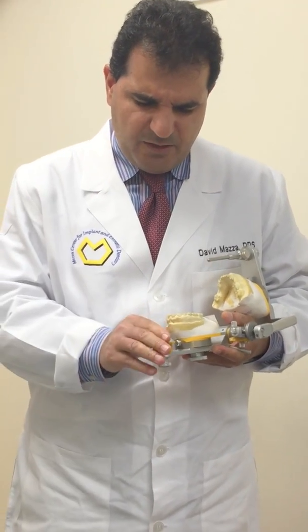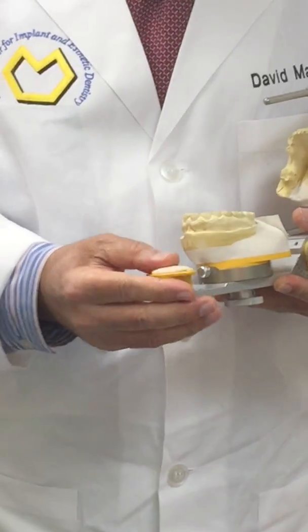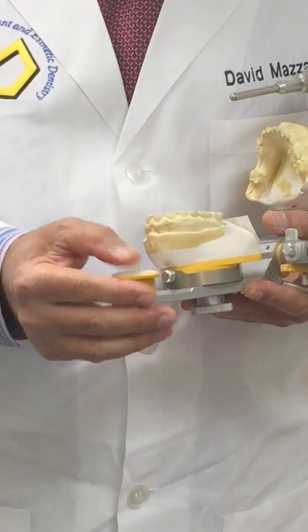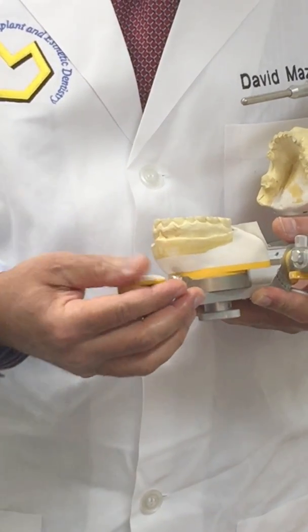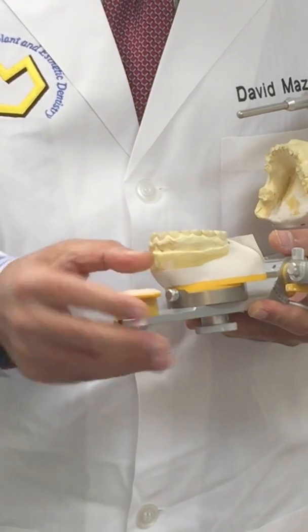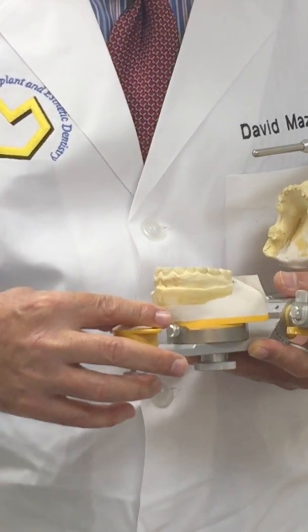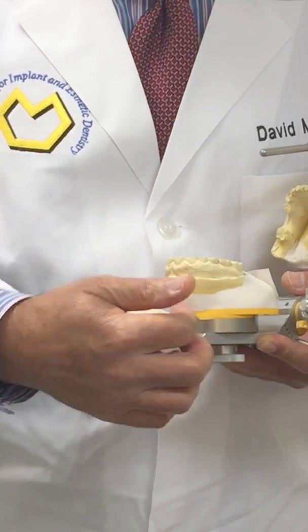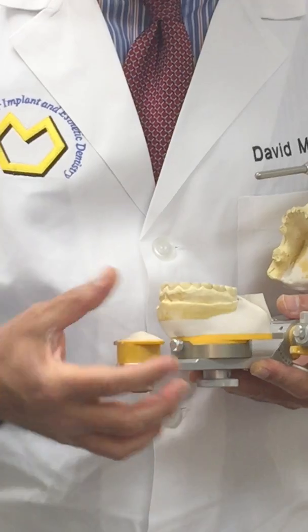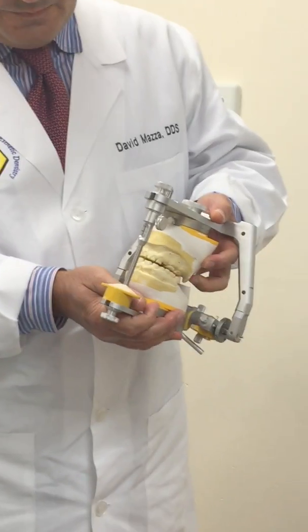At the doughy stage I've picked it up and I'm going to be placing it on the incisal table. I just spread it out, going a little bit over the edge of the table to ensure good mechanical retention so it won't fall off easily. I'm shaping it into a dome to establish a good convex surface.